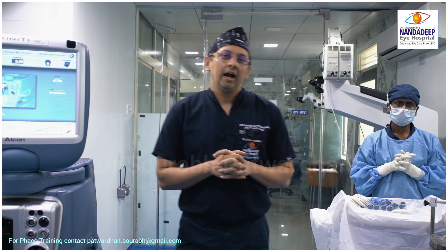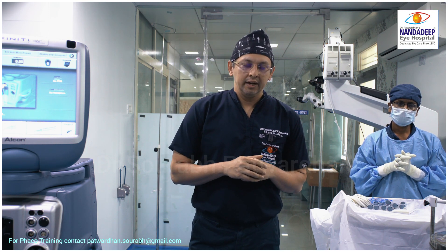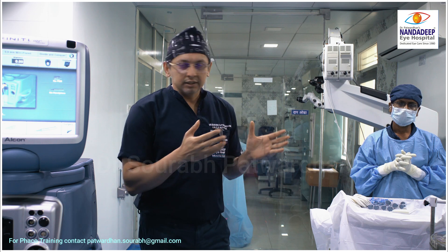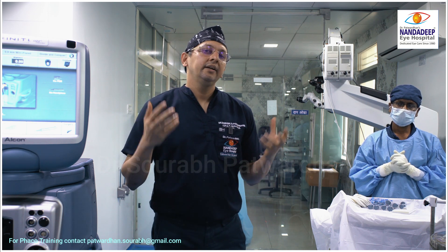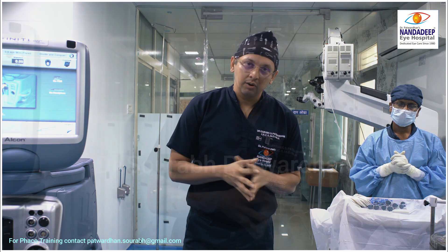After confirming that the OT you are operating in and sterilization equipment like autoclave and ETO have been validated with swabs and biological indicators, we are going to start the surgery. As the surgeon enters the operation theatre, he must track whether all sterilization procedures done outside in the sterilization department were complete and effective, or whether there was some breach. We can get either pre-sterilized equipment that comes in disposable packs such as cassettes, or instruments and devices that we re-sterilize in our facility.